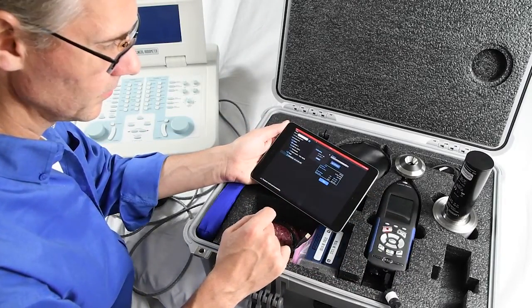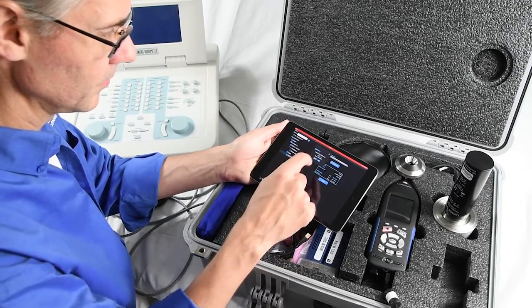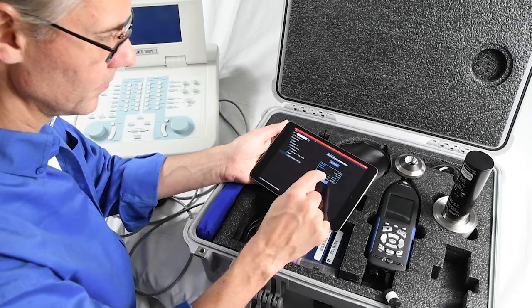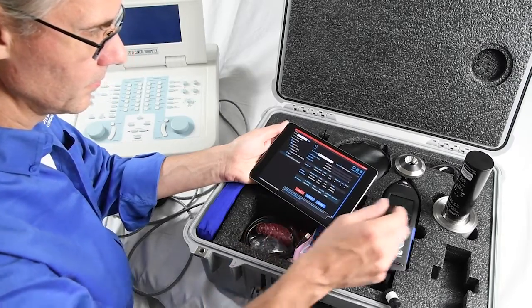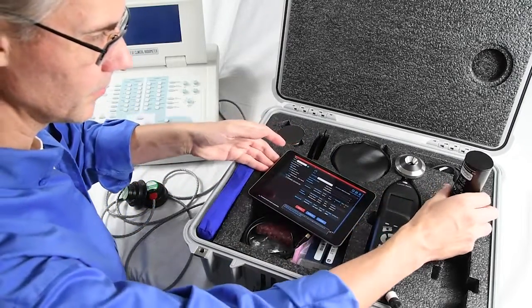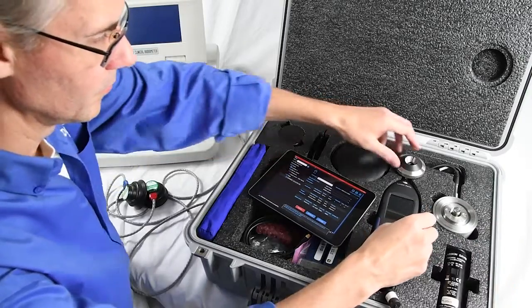Return the equipment to how it was before. As you can see, Brent is calibrating in the case. This is how it is designed. It is also designed to test while in the case. So there is no need to remove equipment at any time.